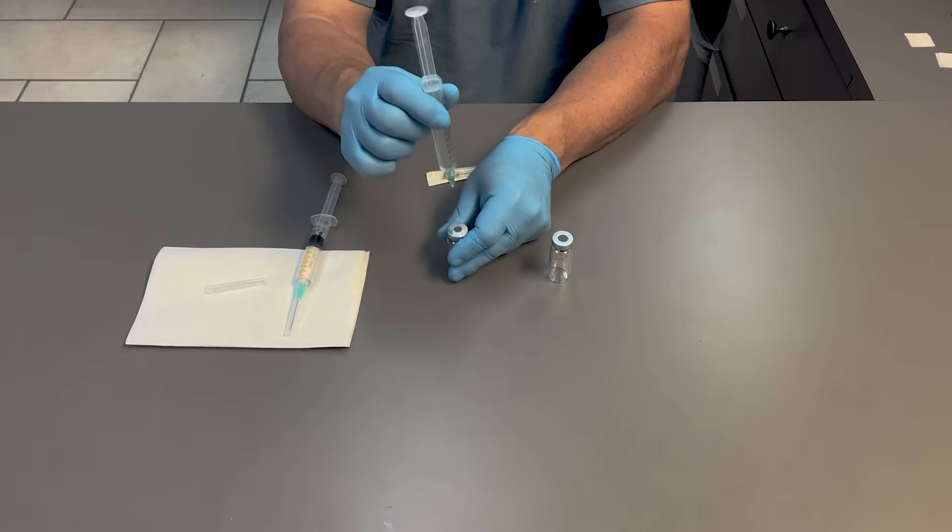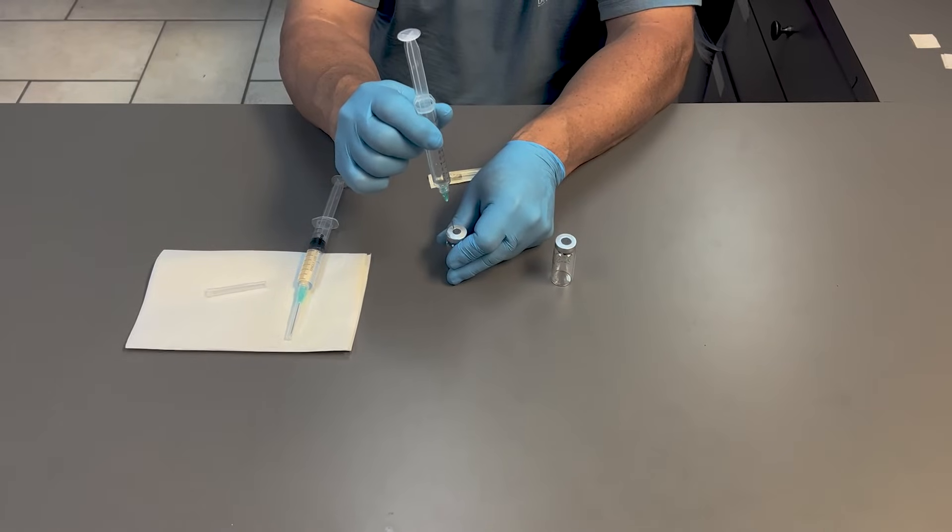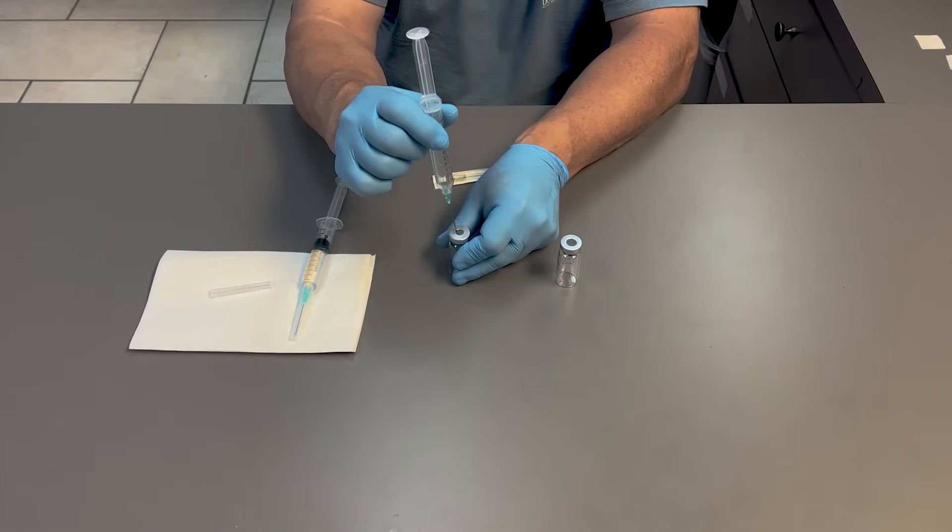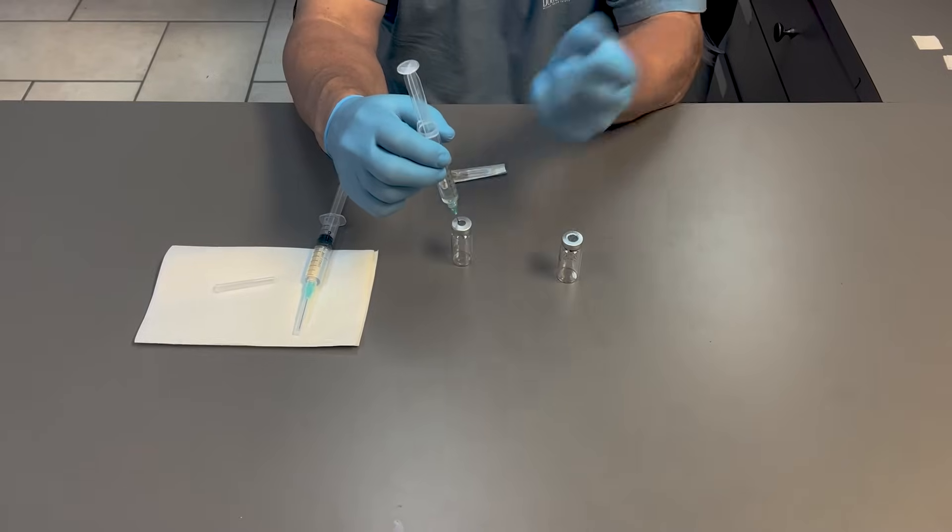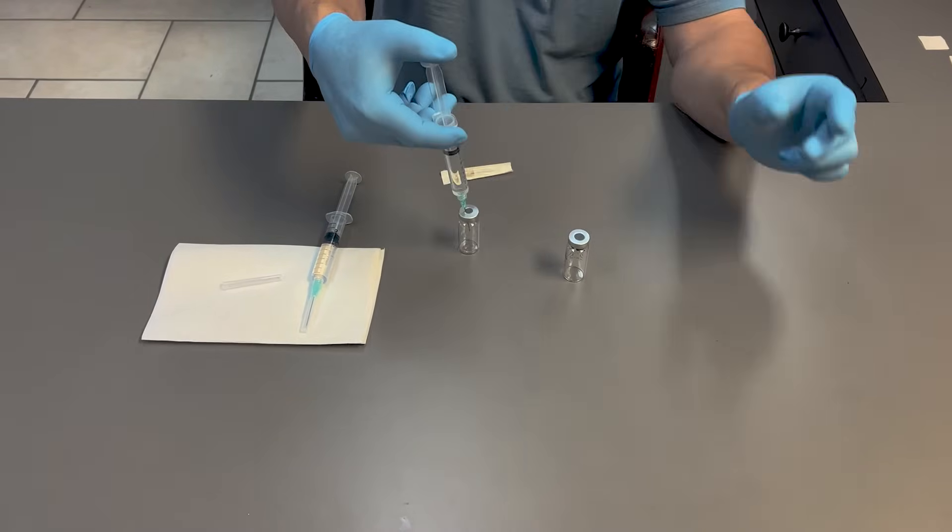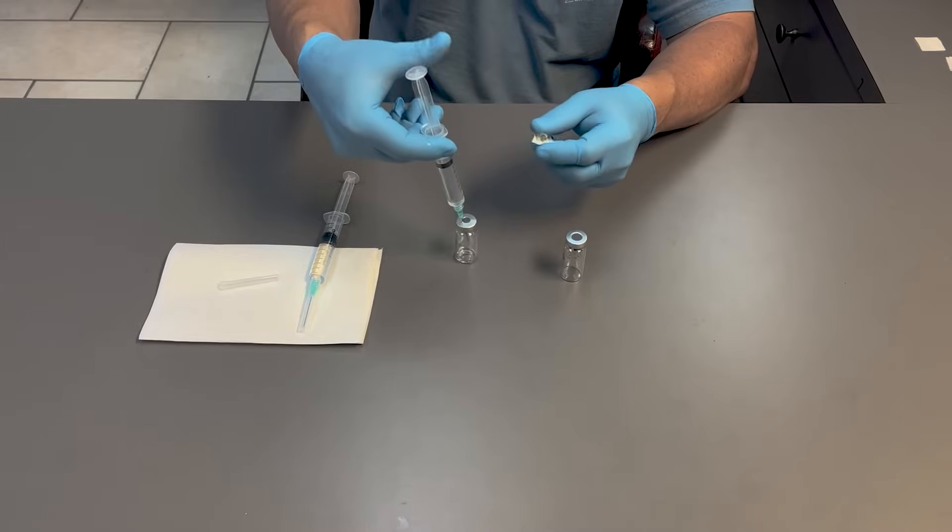So if I put the syringe into a standard vial really close to the edge, which most people do so that there's not a puncture hole in the middle, you can see it's very difficult to fill.